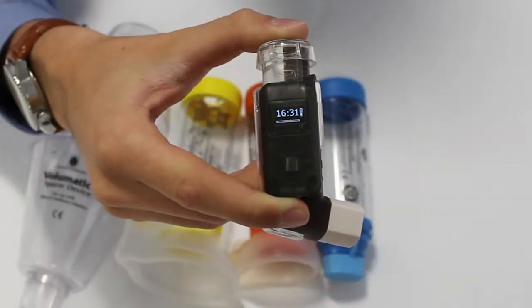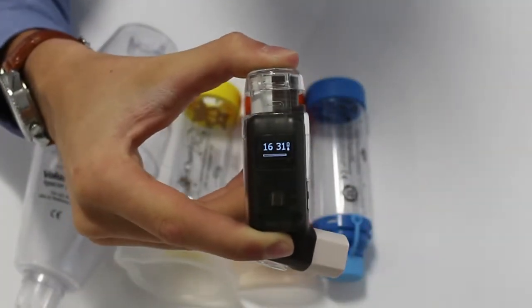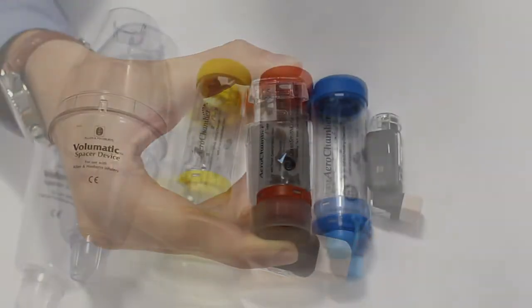By shaking adequately, the dose to be delivered is properly dispersed. The device will give a confirmation tick to show that it has been shaken sufficiently.